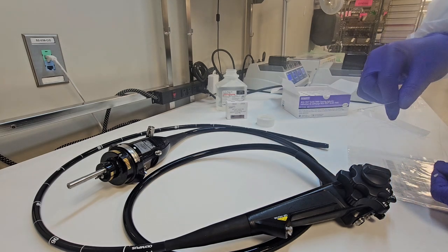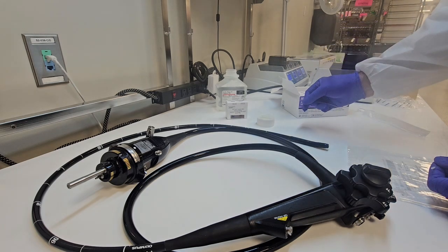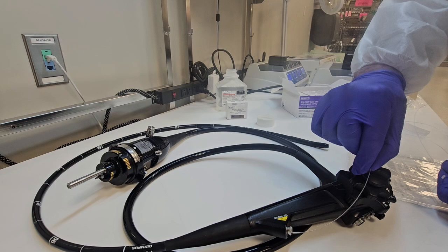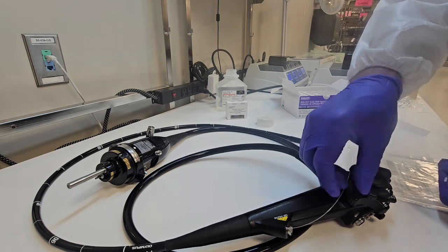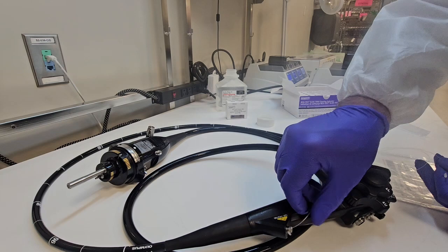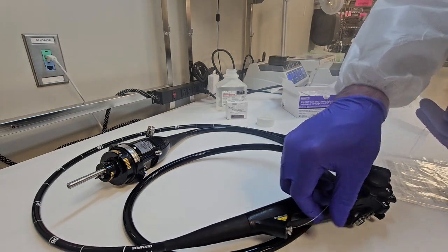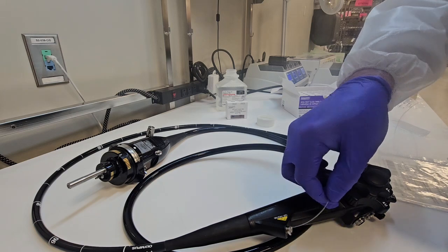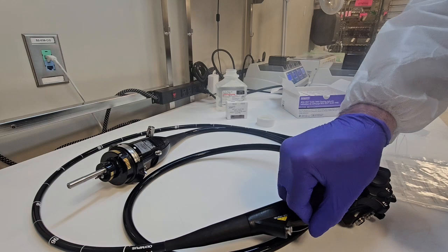Why is that? Some of these tests require sterile water to be injected or flushed into the channel. Are we using sterile water during our rinsing process in the manual cleaning? And these lumens are pretty long. So there's going to be a fair amount of moisture or water left in those channels. So you don't want to mix those two waters because you might get a false positive.